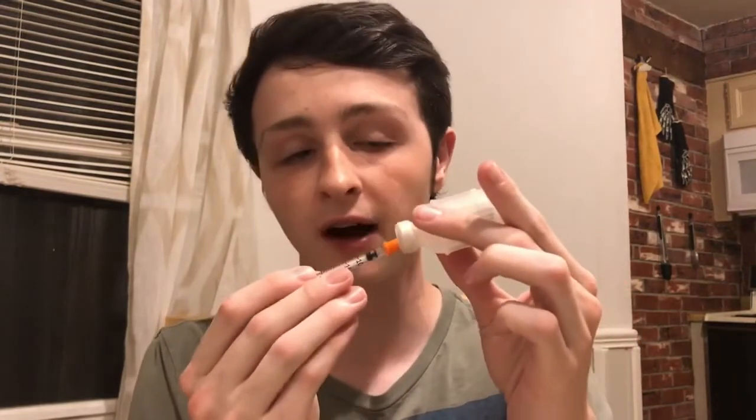So that's how you do it with a vial. You push the air back into it. That's why you draw 3 units of air first and push it in there — because the vial has a fixed amount of space in it. If you're taking insulin out, you don't want to create a vacuum, so you need to put something back in. In this case, you put in air to compensate for that space: 3 units of air for 3 units of insulin. Alternatively, if you forget to do that, that's okay, as long as every now and then you're plunging a syringe in there and injecting a bunch of air into it. You want to make sure there's no vacuum — if there's a vacuum there's going to be problems. A sign of vacuum is when you inject the syringe into the vial and bubbles just start pouring in. If that happens, you need to inject some air into it.